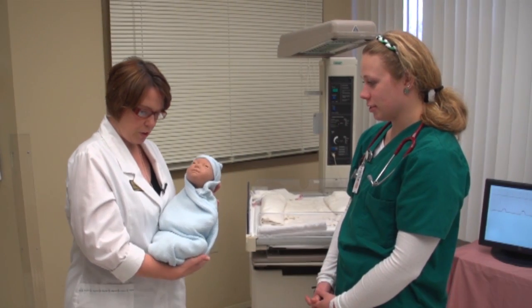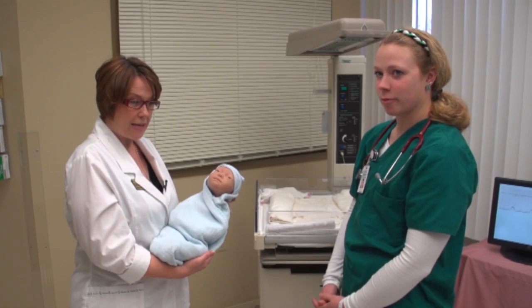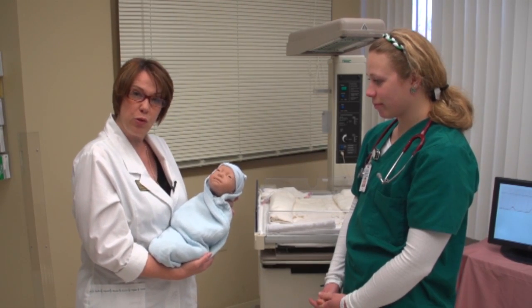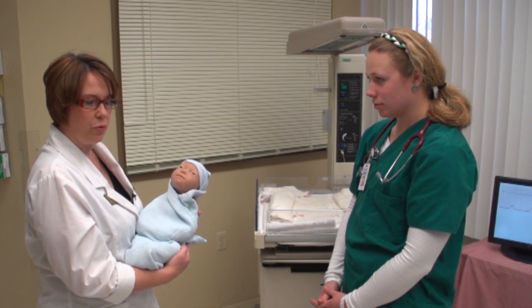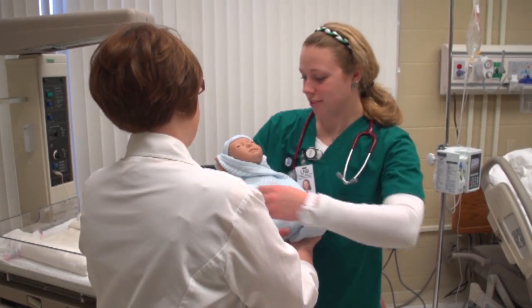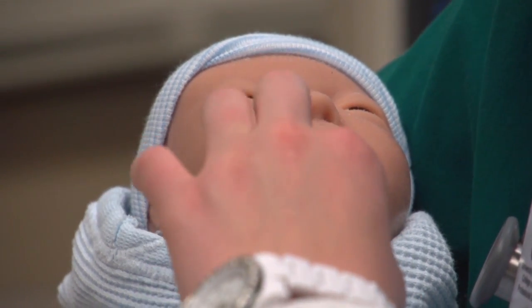Here is Victoria's baby, and he also is very lifelike. When he is born, he cries, he moves, his lips can turn blue to signal that he's not getting enough oxygen. He has the weight that would be realistic with a real baby. We want to be sure you're cradling his head — again, we want to be realistic.